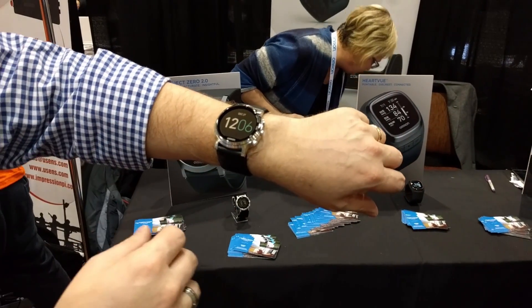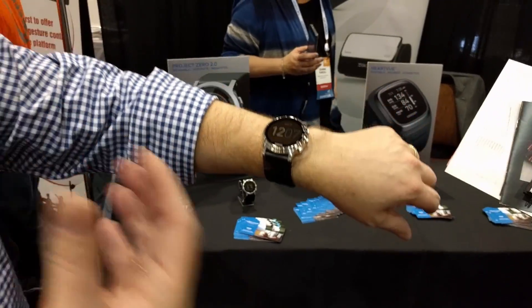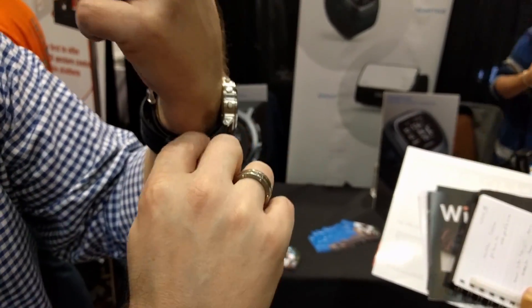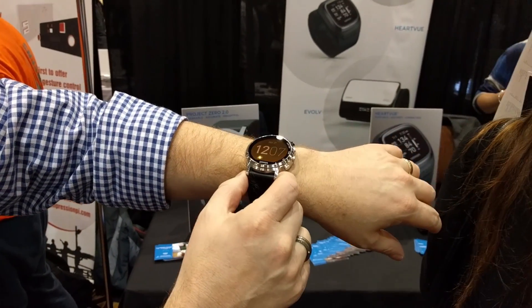The new technology is actually how we miniaturize the product. If you're used to the big cuffs that go on your upper arm in a doctor's office, what we've done is we've taken that and actually built it into the wristband. There's actually inflation that happens underneath the wristband, and that's what actually takes your blood pressure.